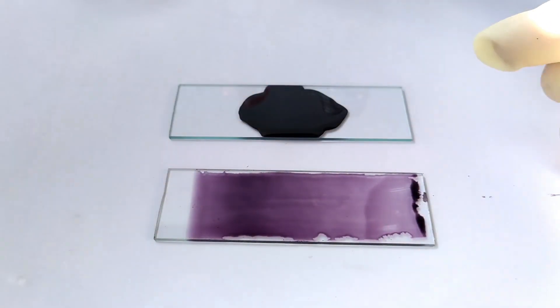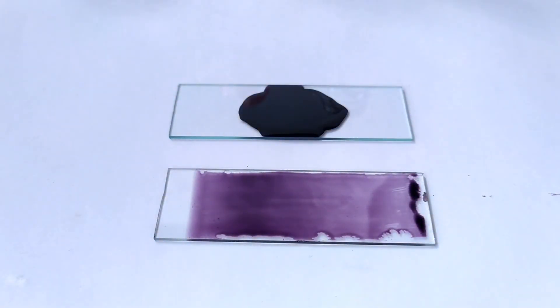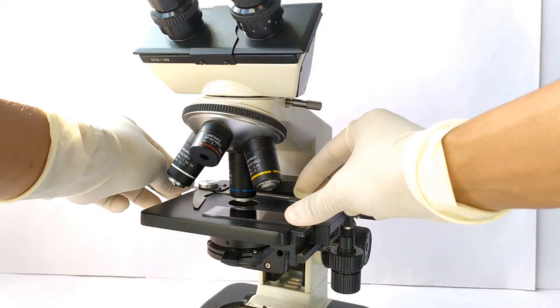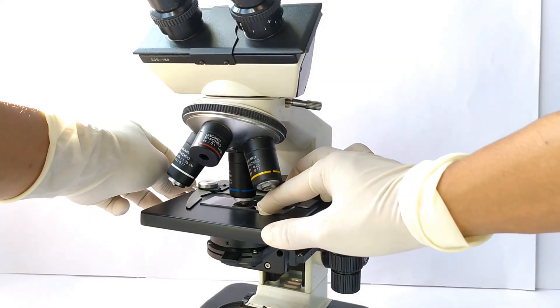Allow the smear to air dry. Observe the slide under high power 40x or 100x of the microscope.